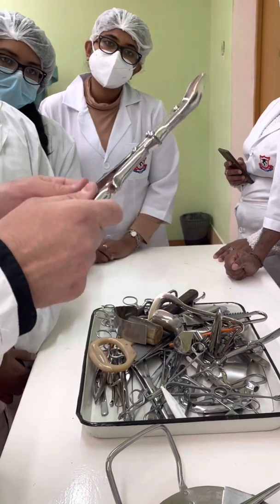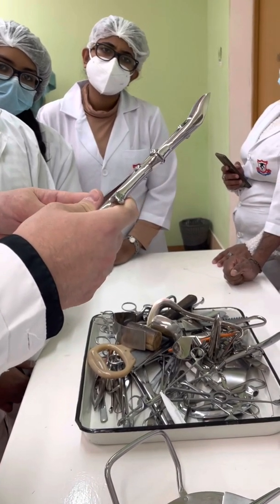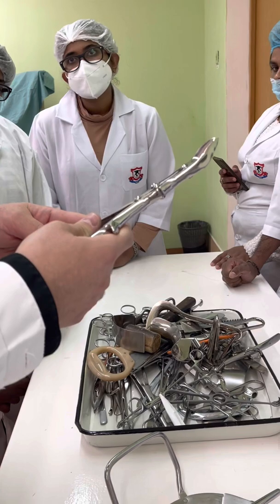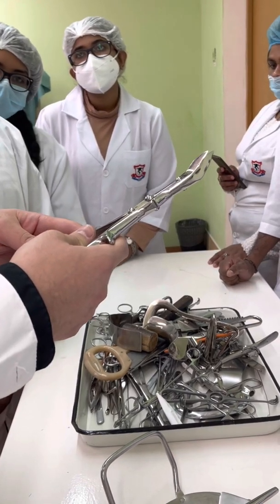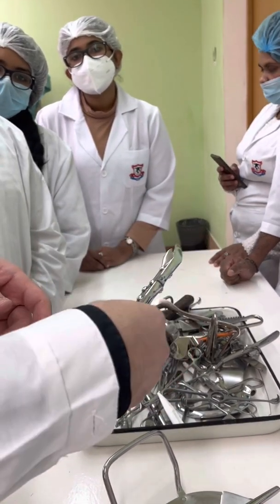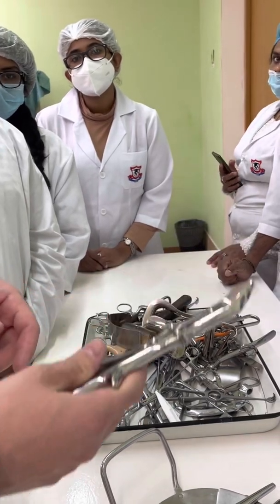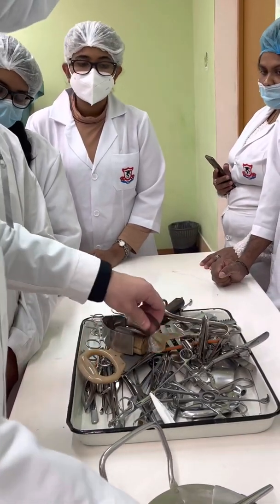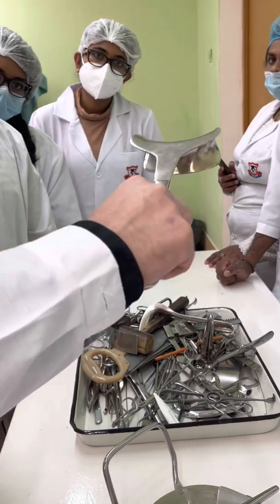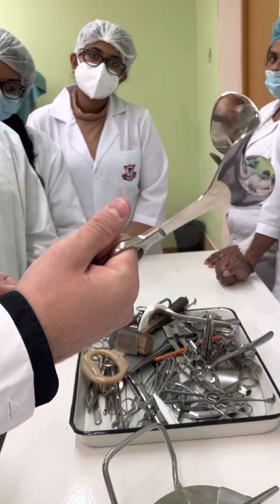Liston bone-cutting forceps for amputation of small bones — for example, bones of phalanges — or for cutting small fragments if those fragments are sharp and dangerous for surrounding tissues. Abdominal retractor for dilation of the abdominal wound.